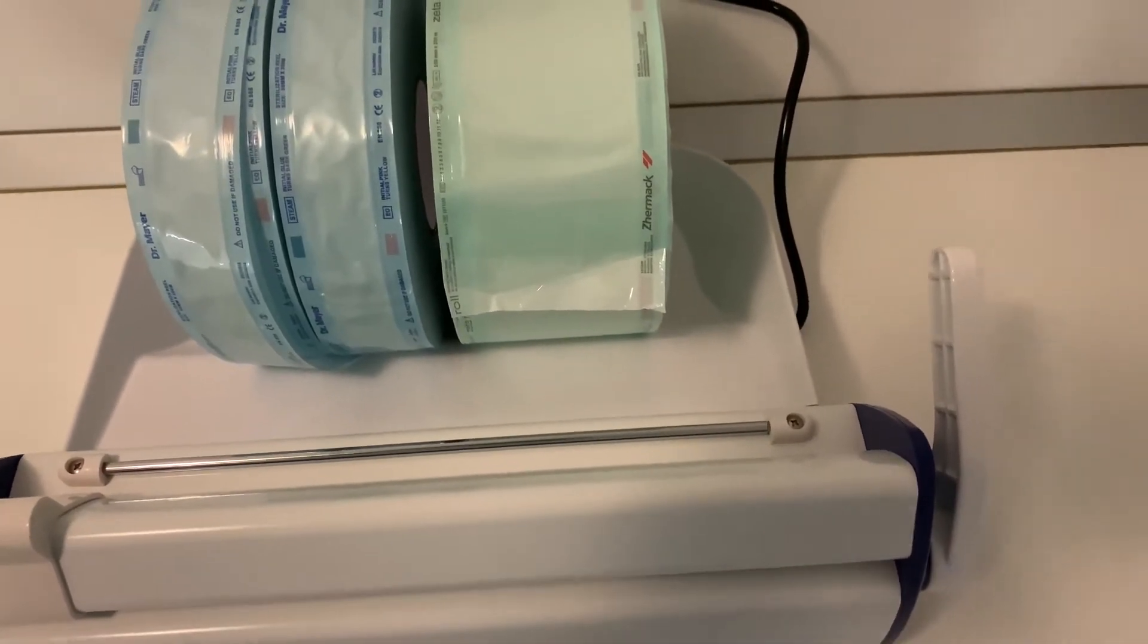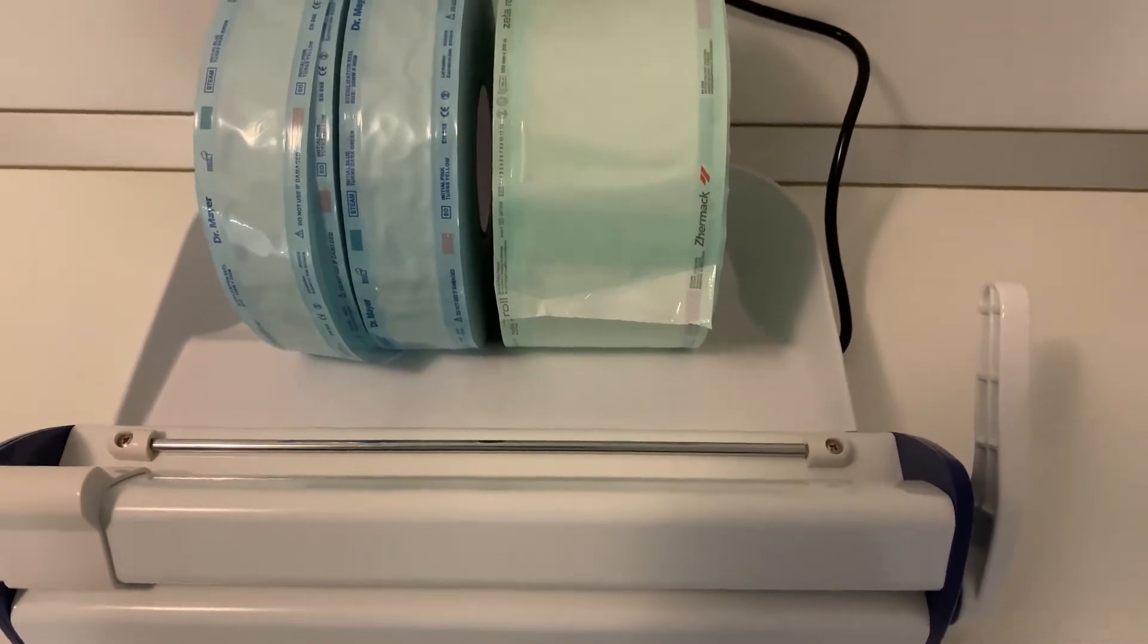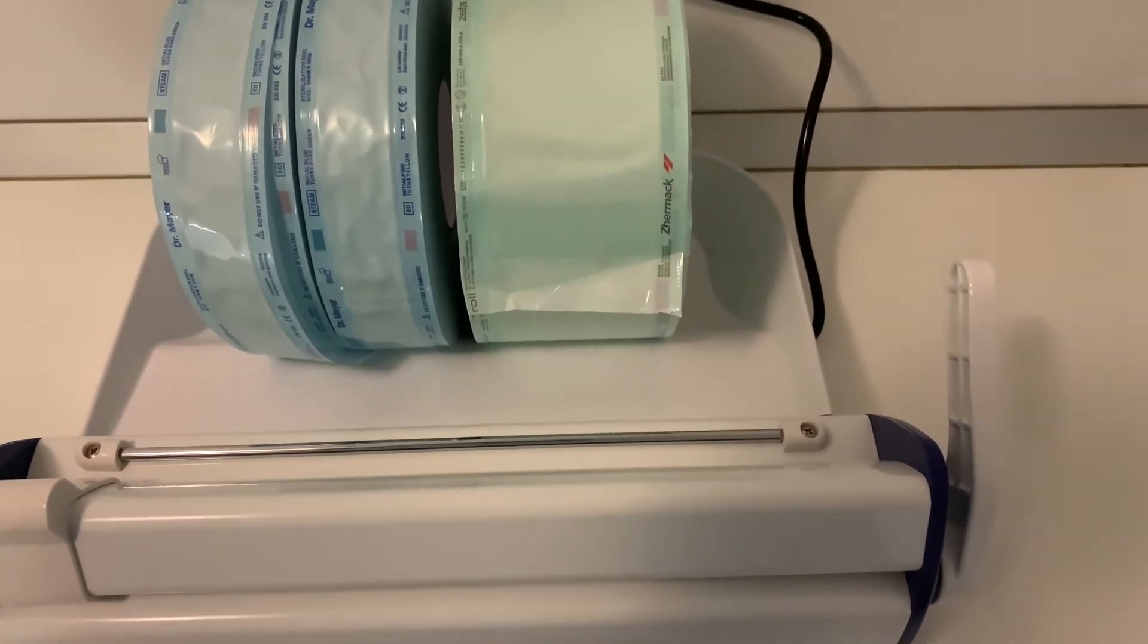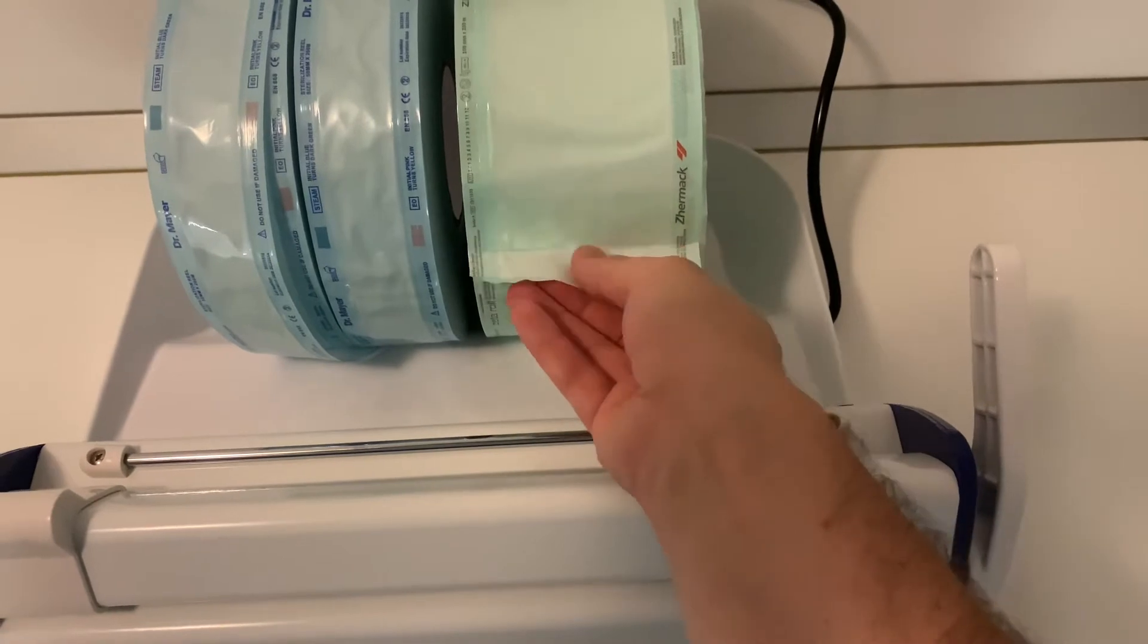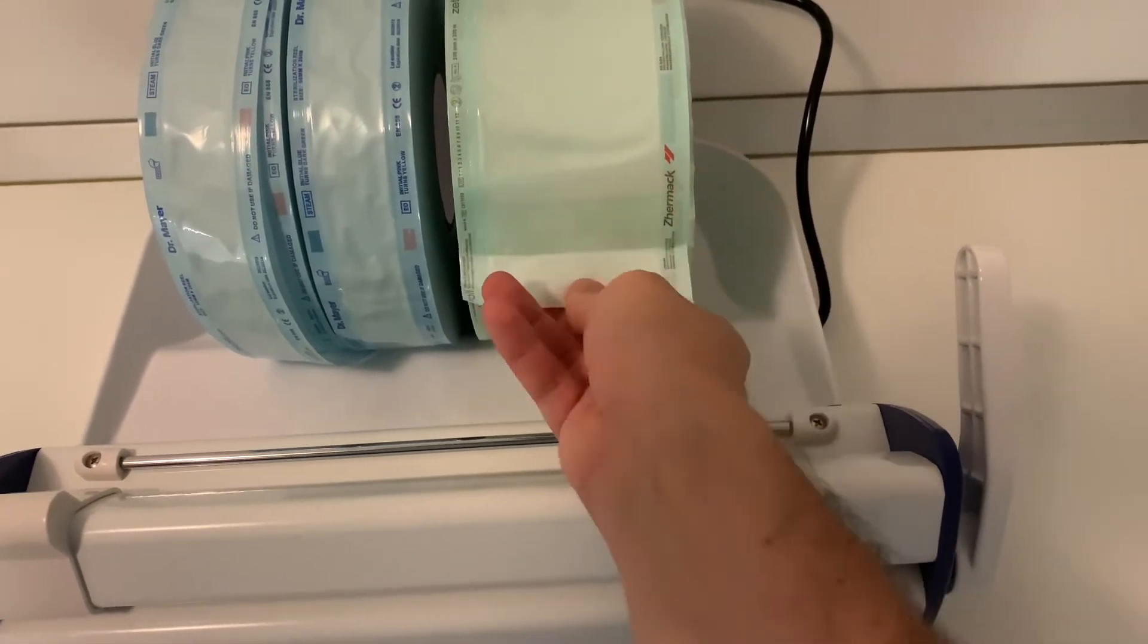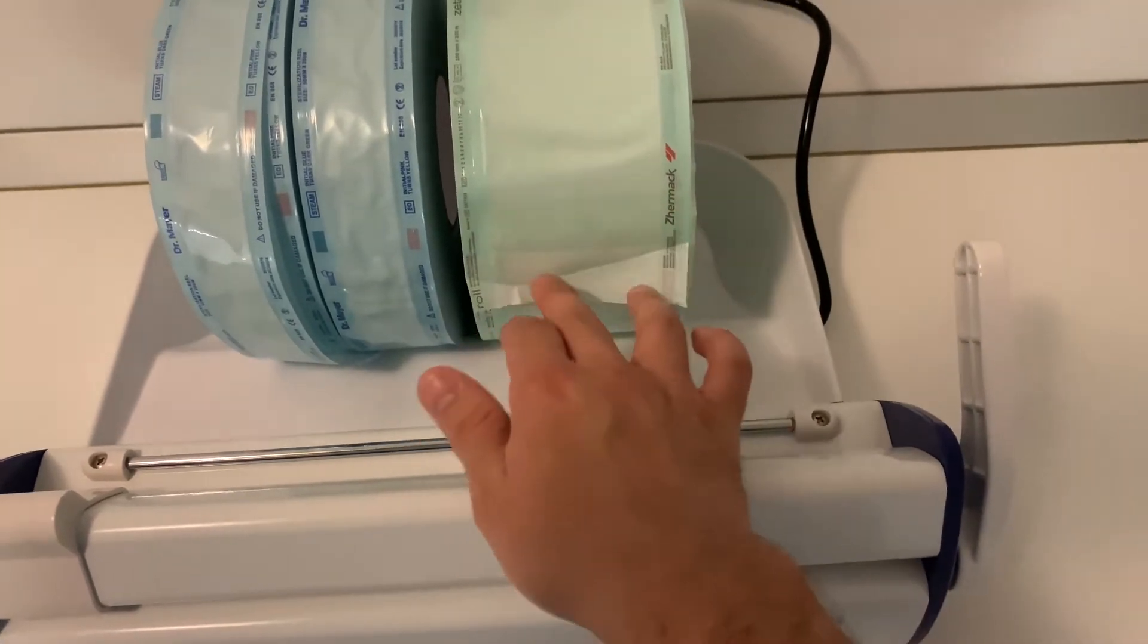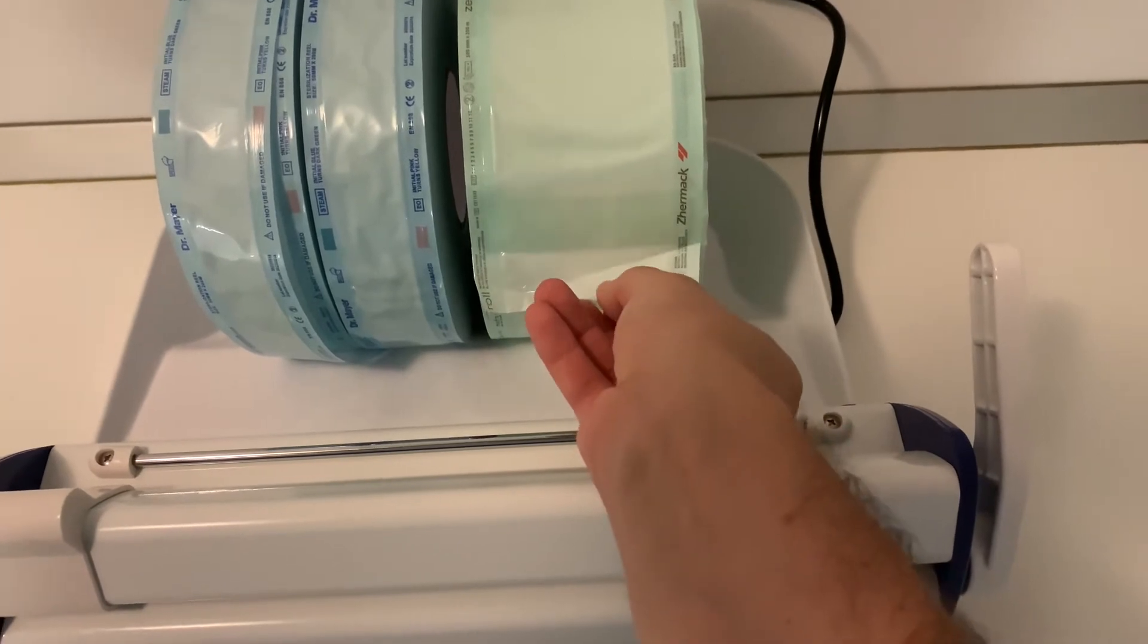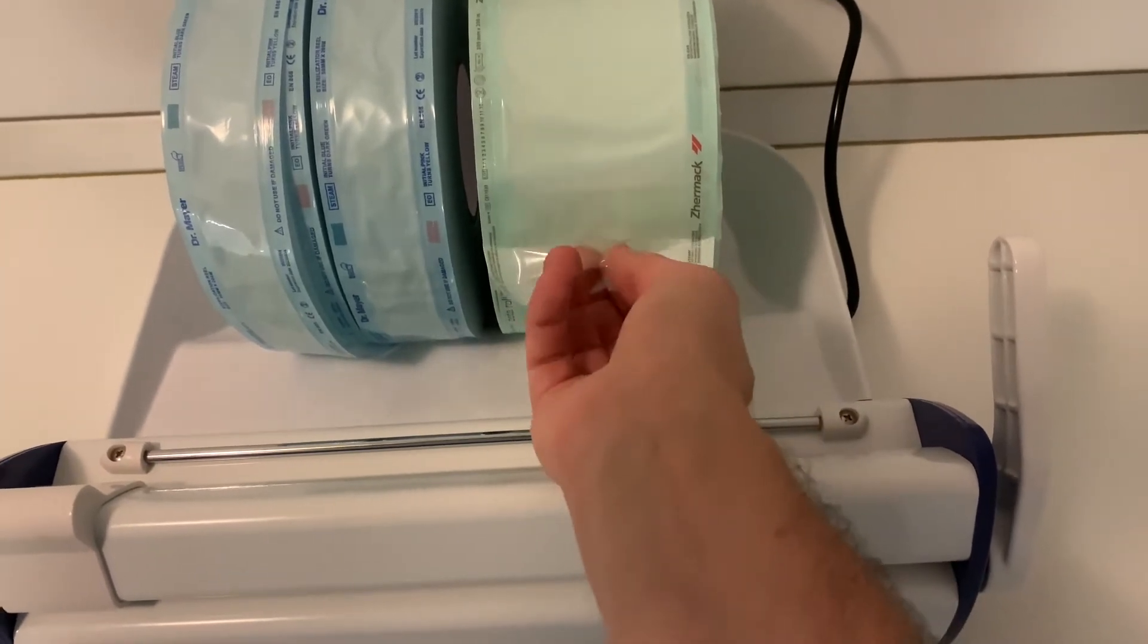Max 25 centimeter instruments out of this. It's made of high quality medical paper and puncture resistant plastic.